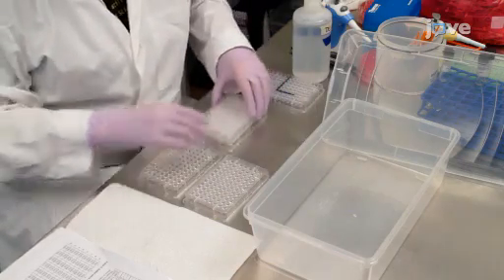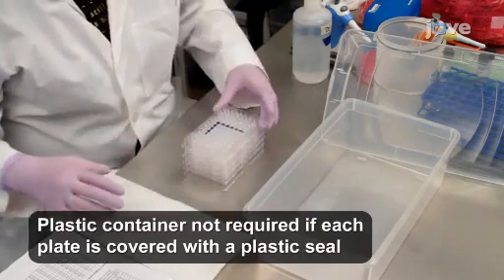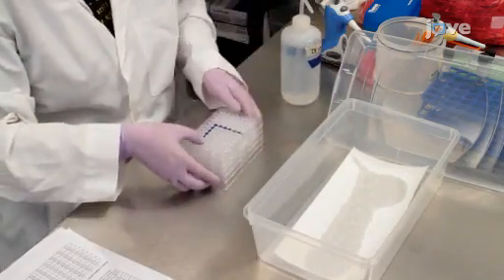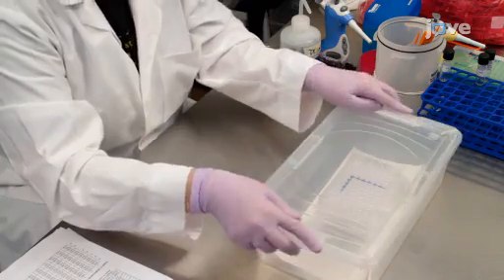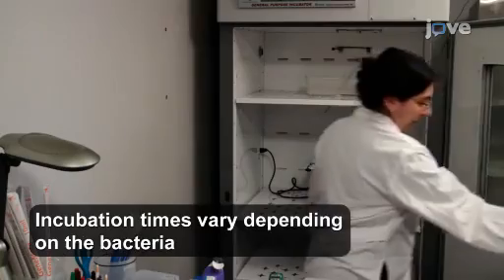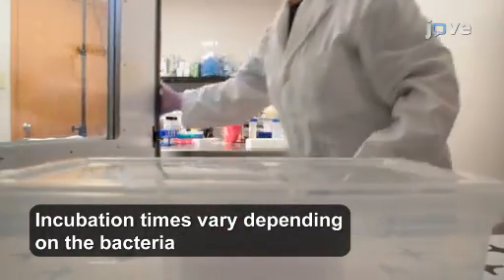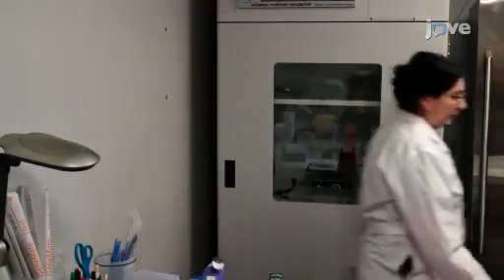Next, stack up to 4 MIC panels in a plastic container, ensuring that the top panel is tightly sealed with a lid. Then, place a damp paper towel inside the plastic container and close it securely with the lid. Within 30 minutes of inoculation, incubate the MIC panels, the colony count plate, and the purity check plate in an ambient air incubator at 35 ± 2 degrees Celsius for 16 to 20 hours.